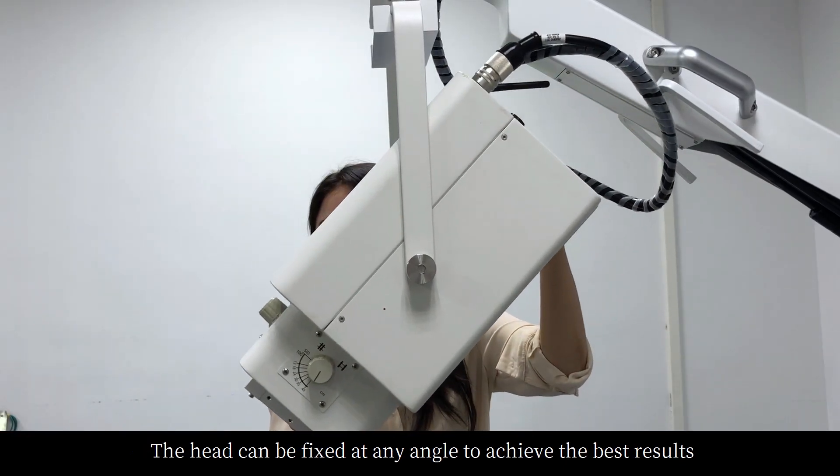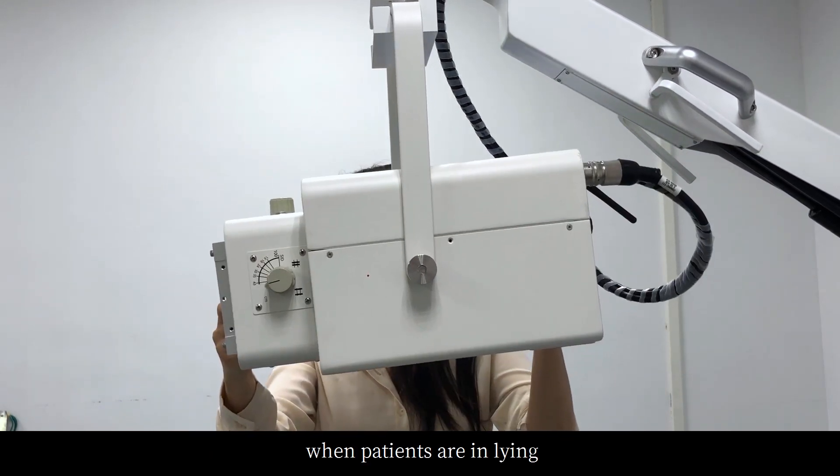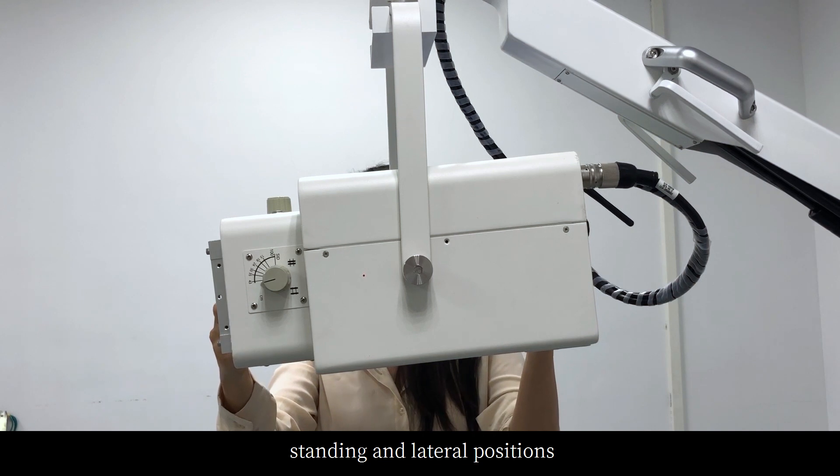The head can be fixed at any angle to achieve the best results when patients are in lying, standing and lateral positions.